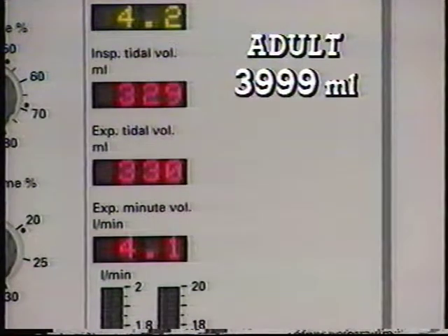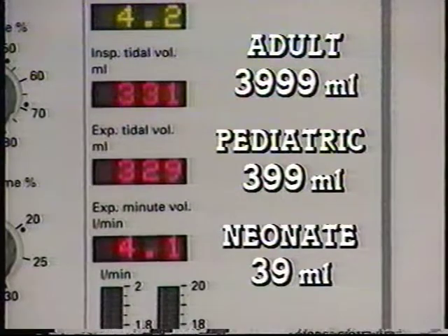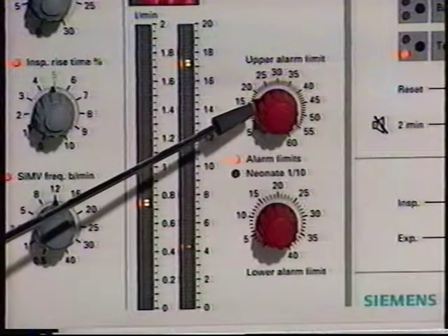For adults, the maximum measurable volume is 3,999 milliliters. For pediatrics, it's 399, and for neonates, it's 39. If these levels are reached, all three of these displays will start flashing and you will get a technical alarm with an overrange message. We'll review alarm messages later in this tape. Right now, let's discuss the alarm limit knobs.